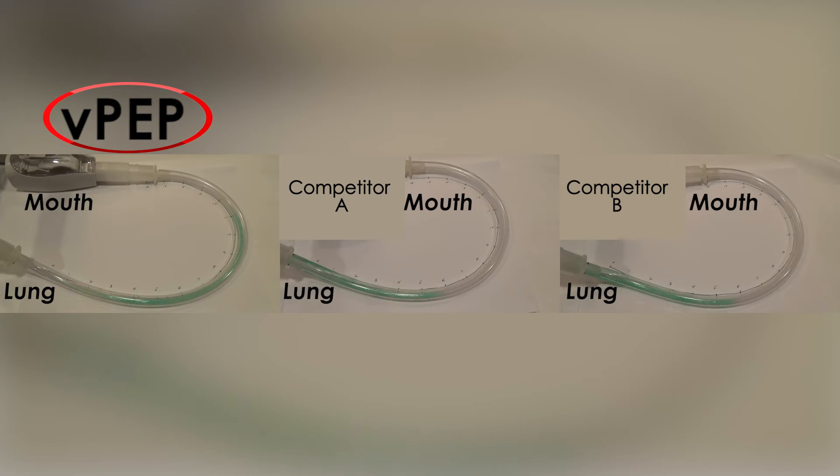In the same manner as with the VPEP, we connected two other OPEP products to the simulator to examine the movement of secretions. Here's a side-by-side comparison of secretion movement for the VPEP and the two other OPEP devices.